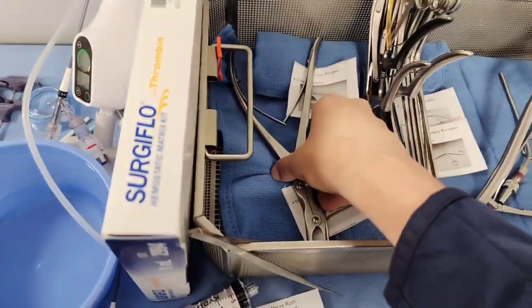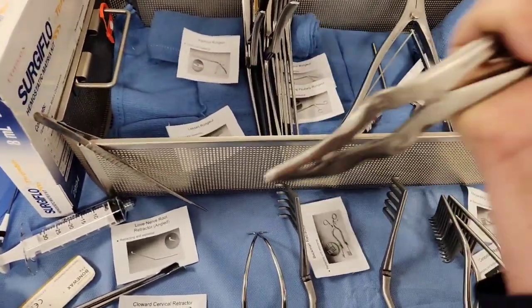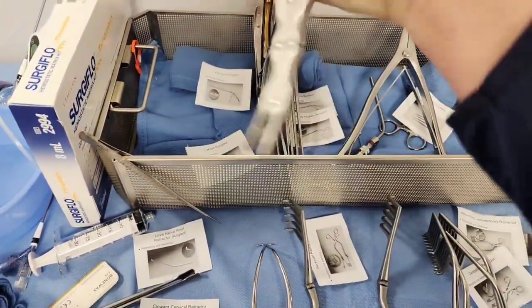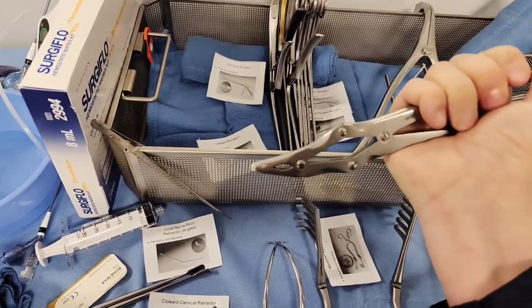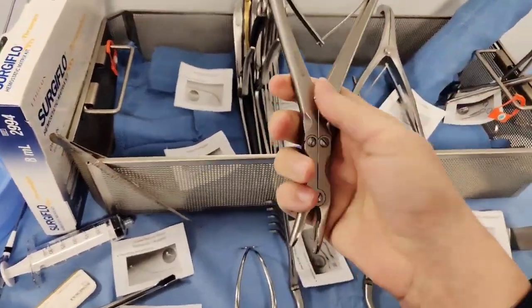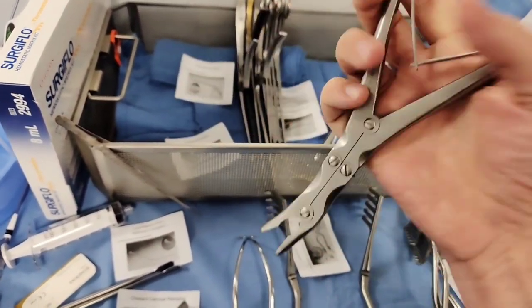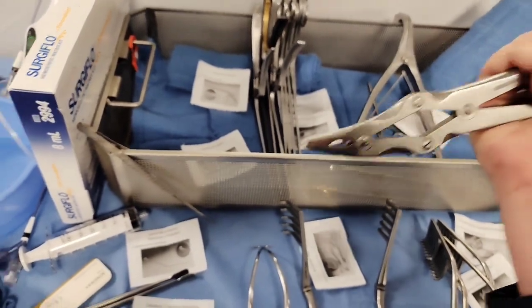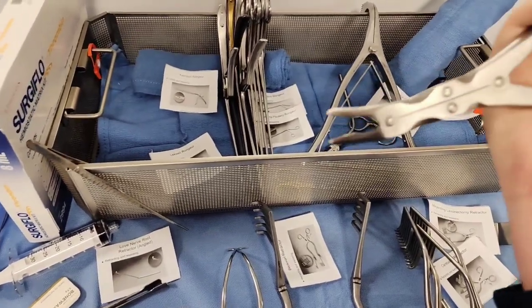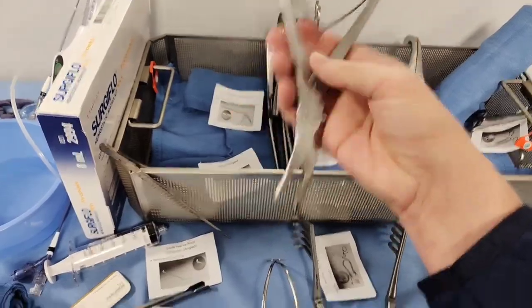Looking over here — this big one is a rongeur. If you don't know what rongeurs are, you're shaping bone. This is what they call a Leksell rongeur. You grab onto that spinous process and tear out the spinous process — it's a heavy-duty type of rongeur. You're manipulating and reshaping bone or taking parts of bone out. In orthopedics, we're taking off osteophytes — those bony spurs that accumulate over time and become problematic. The Leksell rongeur.